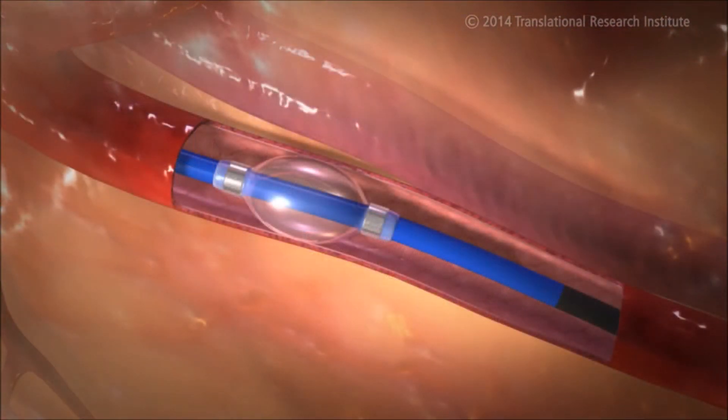The ND infusion catheter's balloon is uniquely designed to reduce radial forces, potentially minimizing vascular trauma.